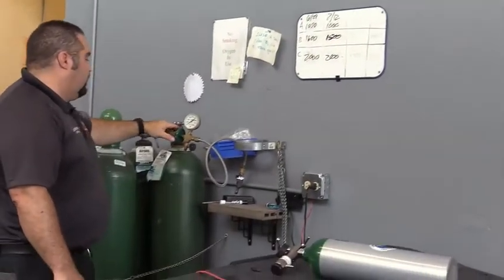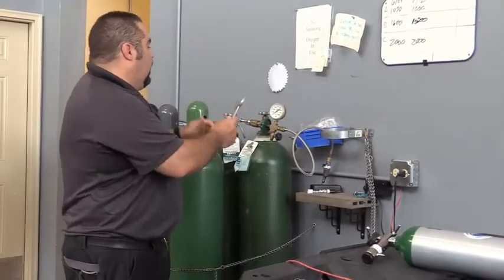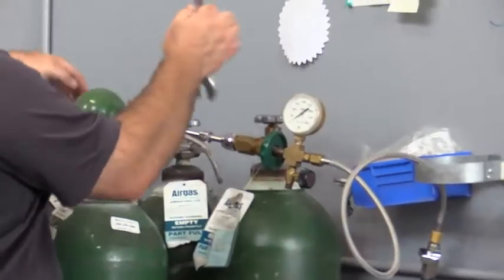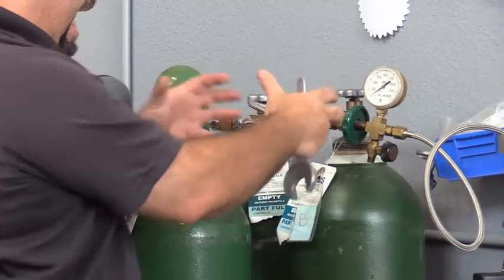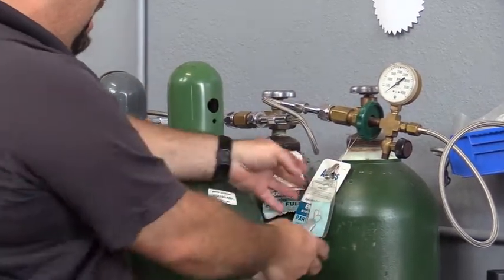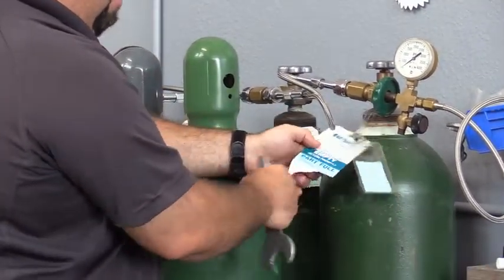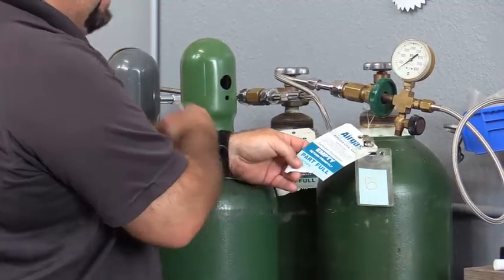What you're going to need to do is take one of these wrenches, and you're going to need to break down all these hoses and take them off. What you're going to do is you're going to pull A out because that's going to be your lowest pressure one, and you're going to rip the tab off and mark that empty and set that aside.